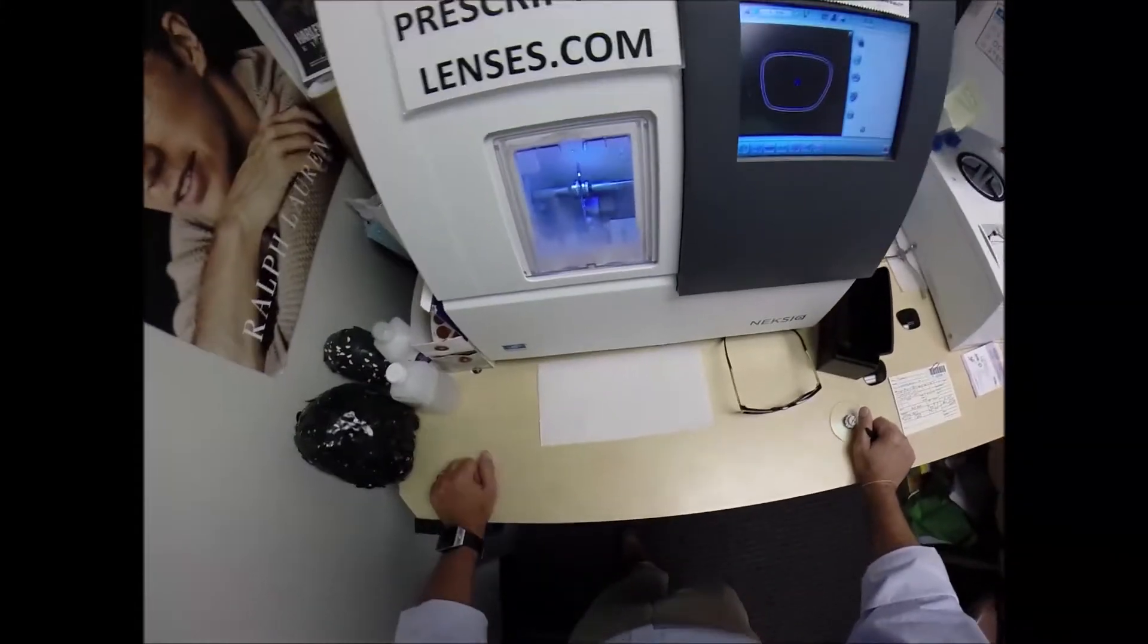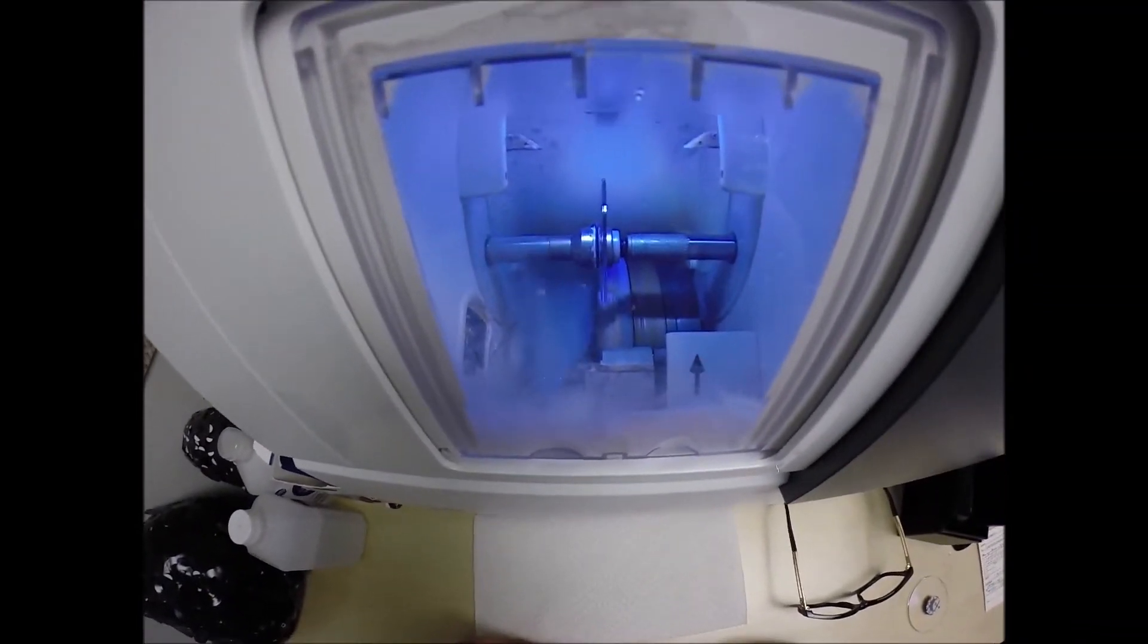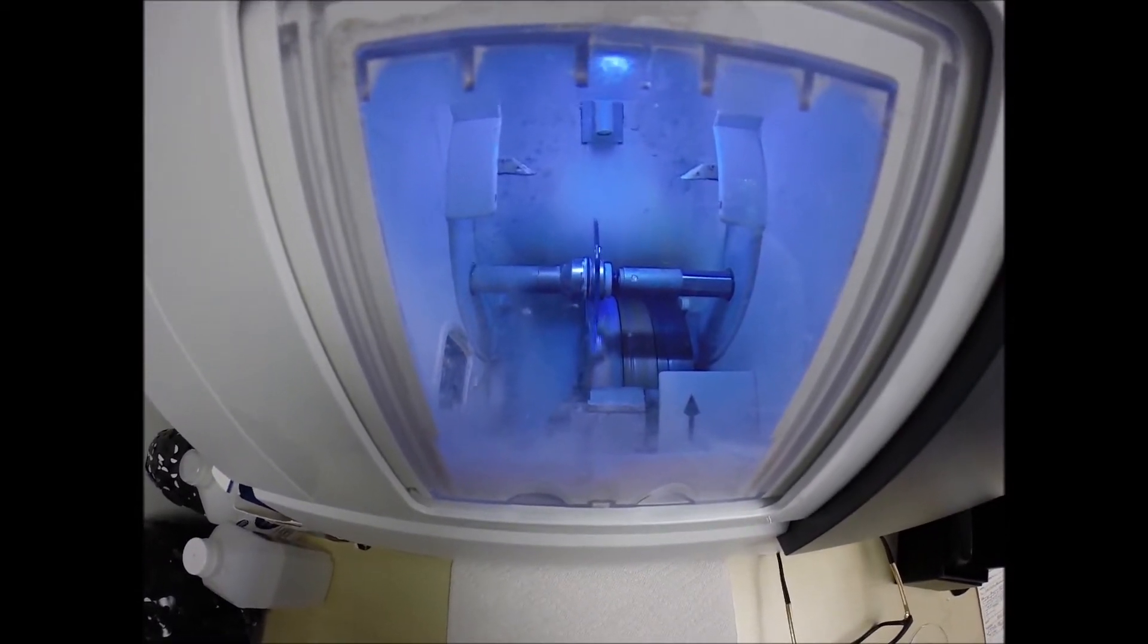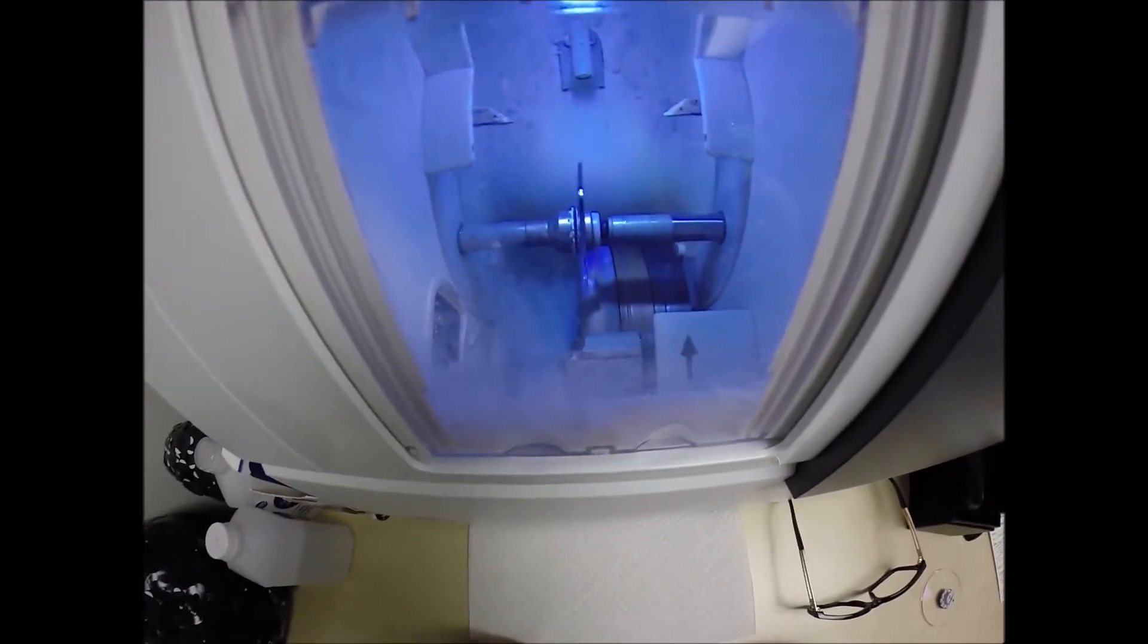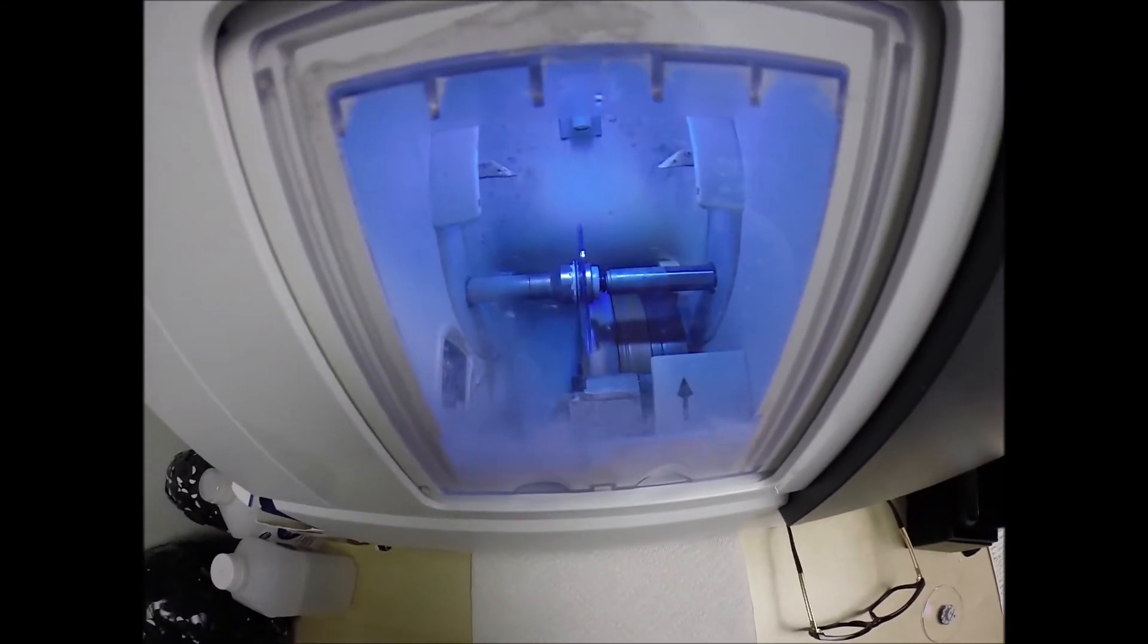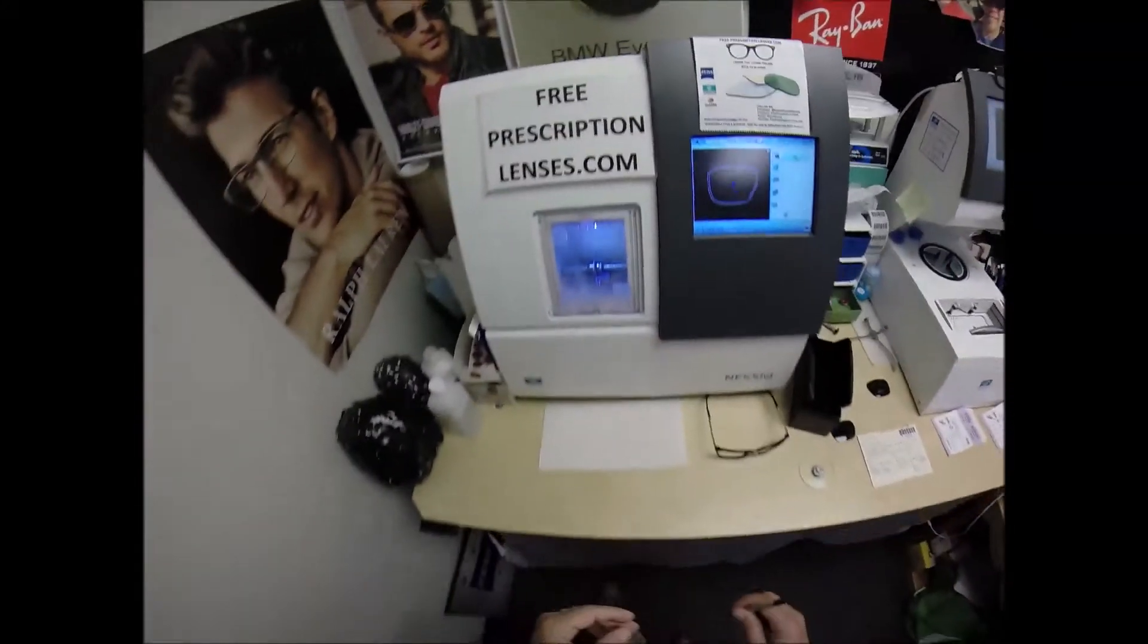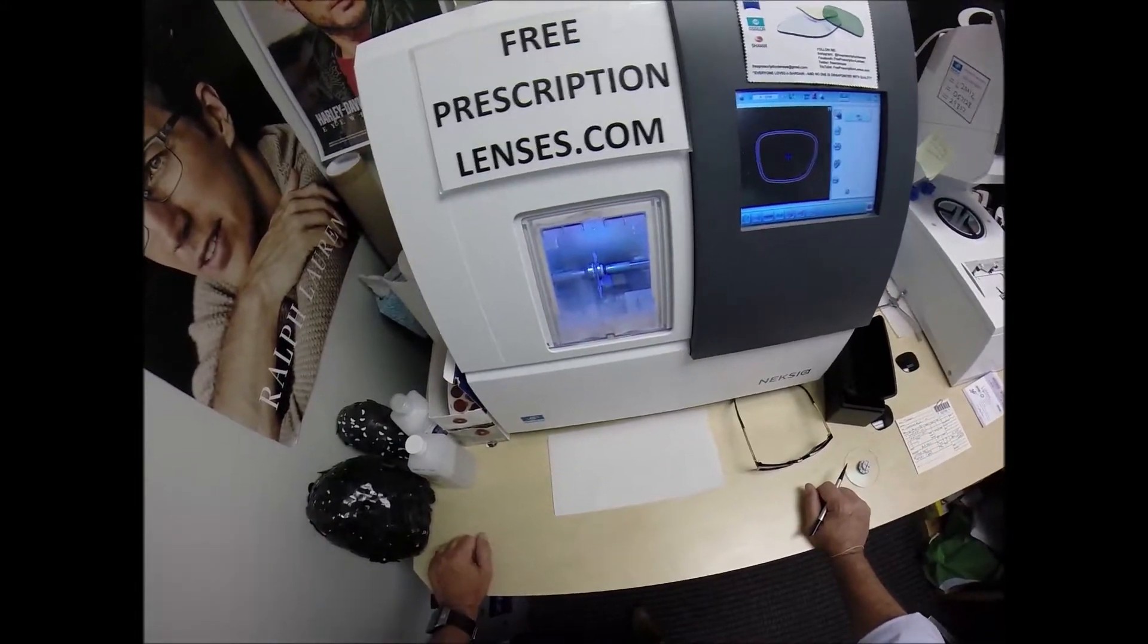Of which you will have none with your prescription in this frame. Now, the water in the background is there to catch the optical sawdust as it comes off the cutting wheel. Polycarbonate lenses cut dry. Speaking of dry, my throat got dry there.